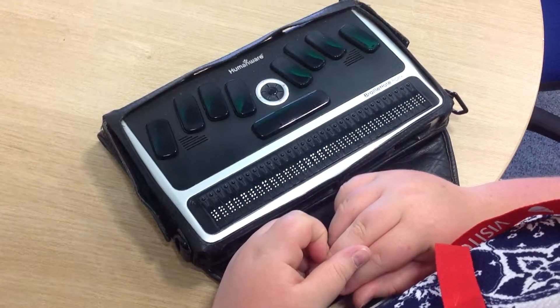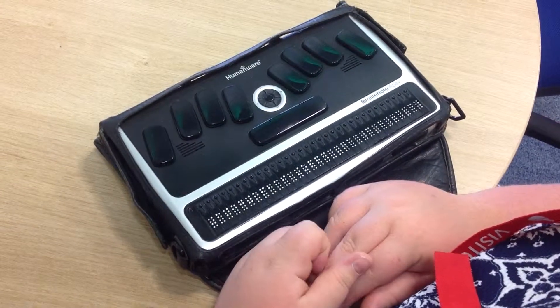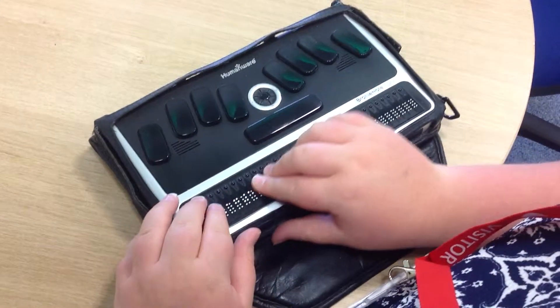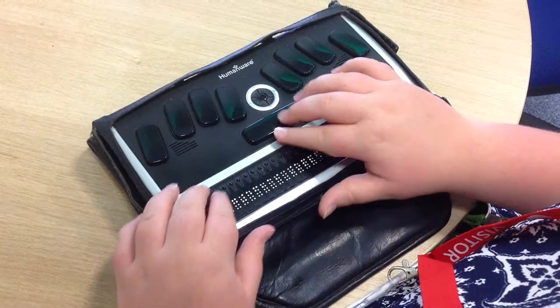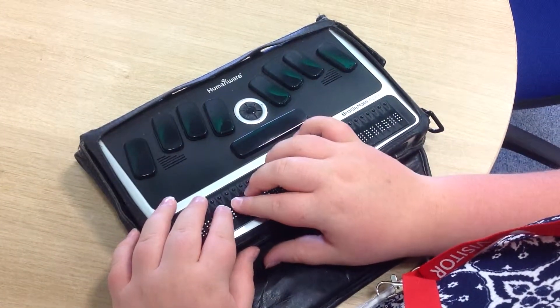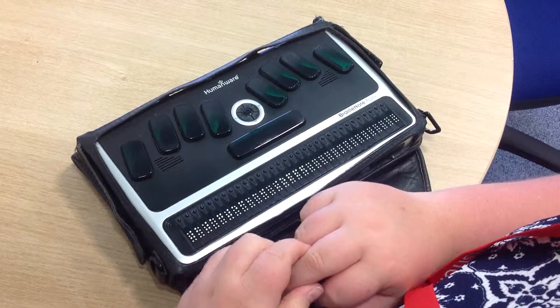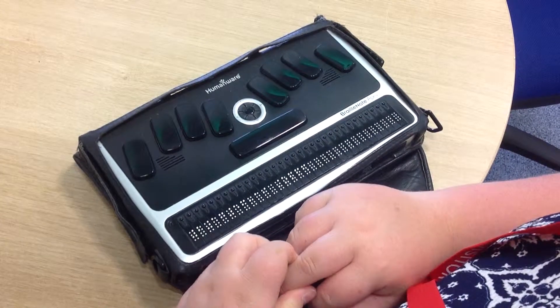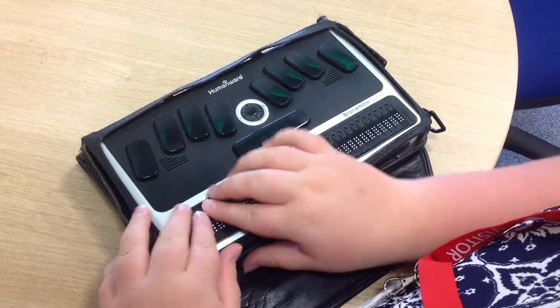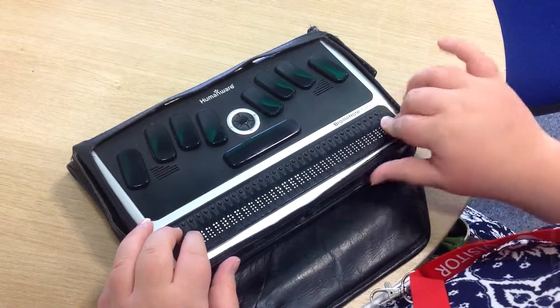Which means you can delete things and put spaces in or just make corrections. So if you've typed something and then you realise you had to go back and change something, you can use those little cells to help you find it. Below them, directly below them, is a display.